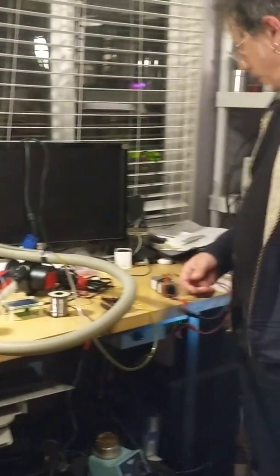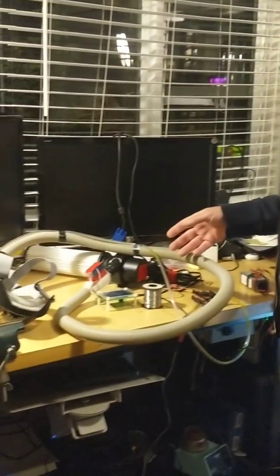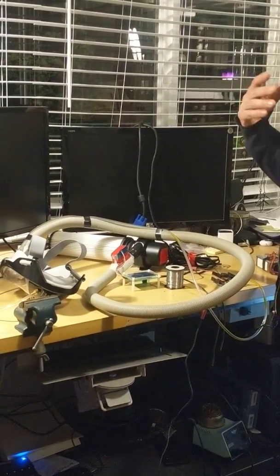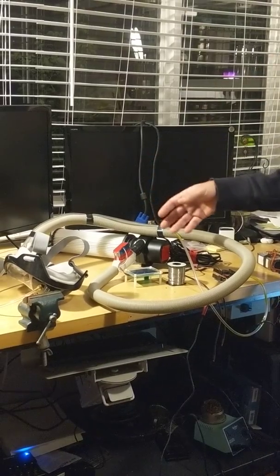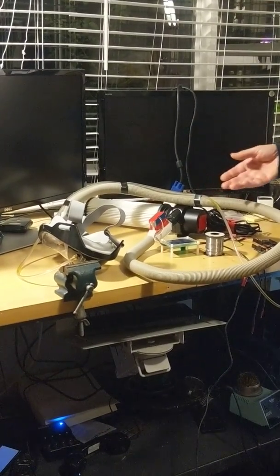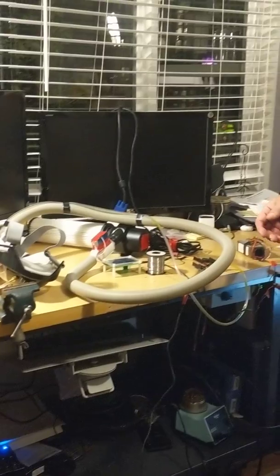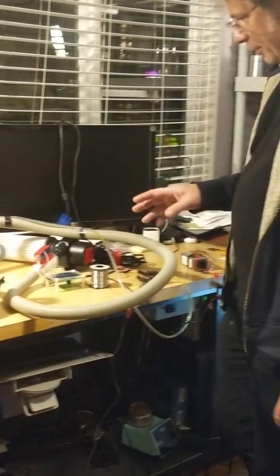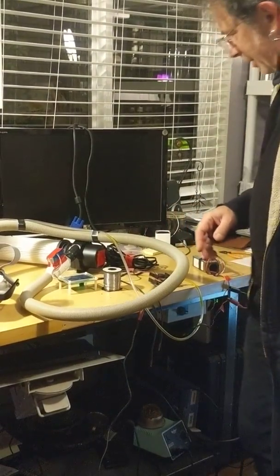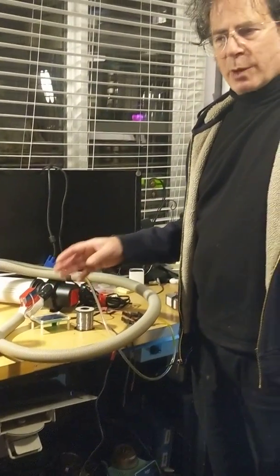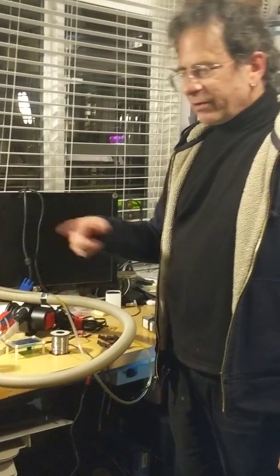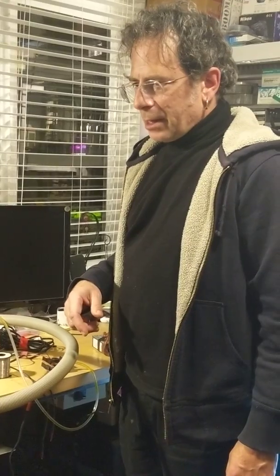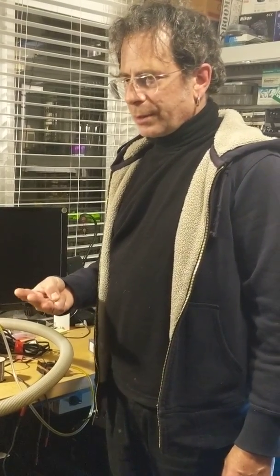So this is a PAPR, which is a powered air purifying respirator, which is used typically by hospital personnel to avoid contamination. The reason I call it auto PAPR is because it's actually pressure regulated, it's pressure controlled with feedback, and that does three things for you.